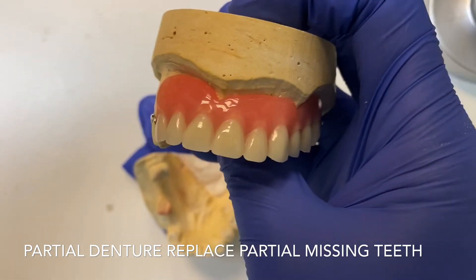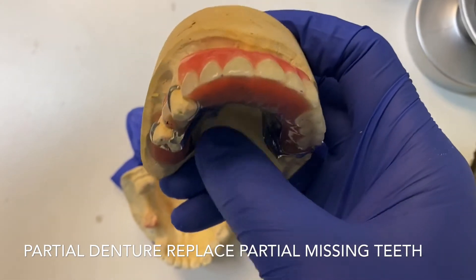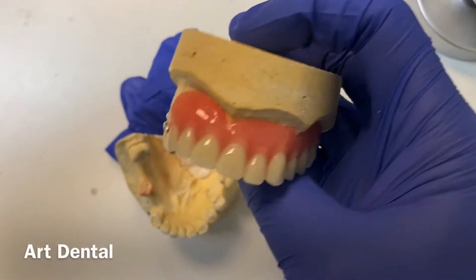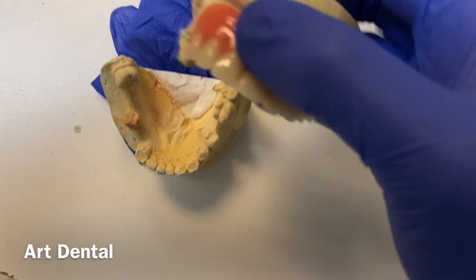You can push it back in, making sure it is stable before you use it. It's pretty cool, you know.